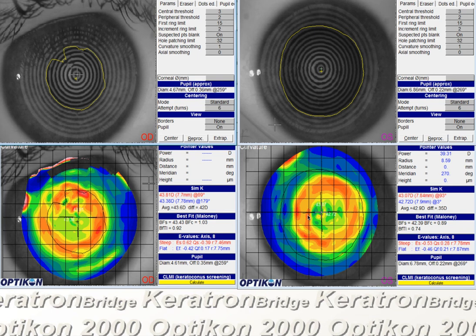It's not real smooth because the patient has drier eyes, or maybe the topography is taking a little bit longer. A drier eye can also affect how clean the treatment looks. So I don't think it's a bad idea, if you observe this clinically, to go ahead and start the patient on an artificial tear regimen — non-preserved — and that may help the topographies look better. It may help the patient feel a little bit better too, in case the eyes are irritated from time to time.